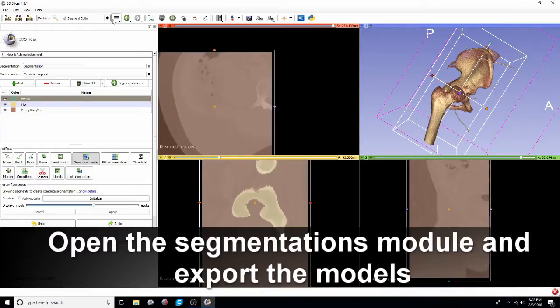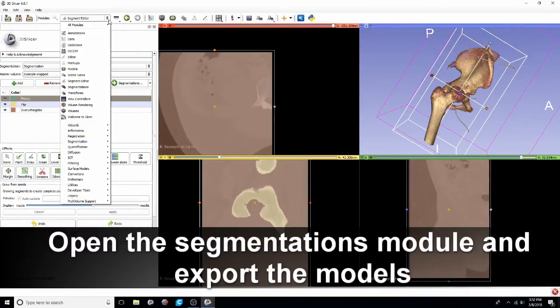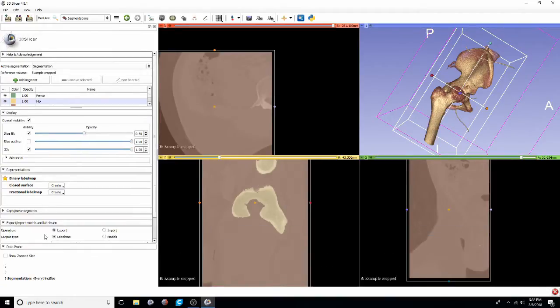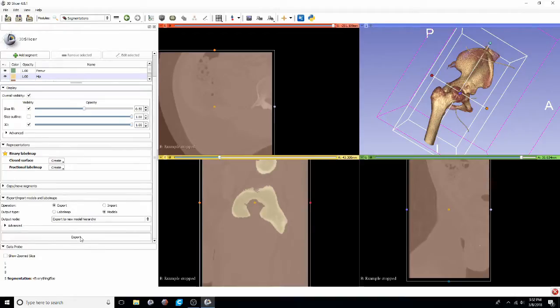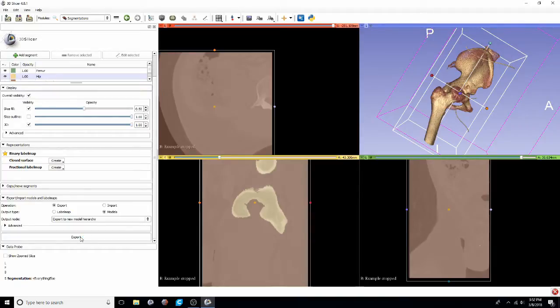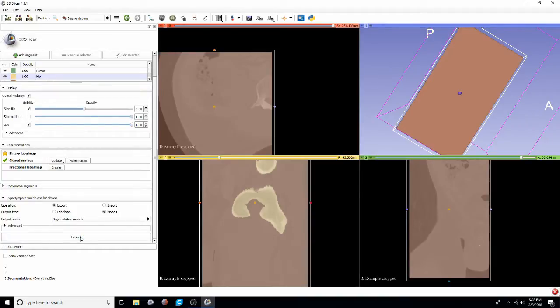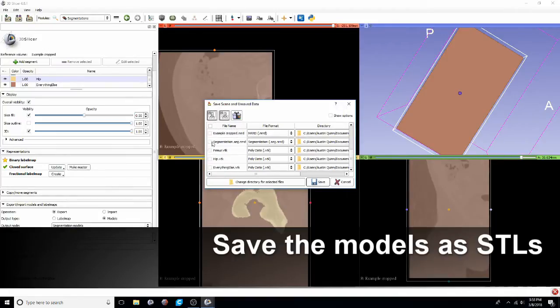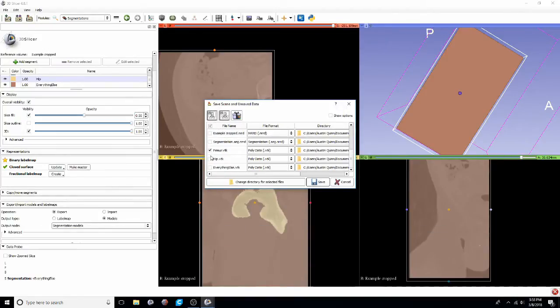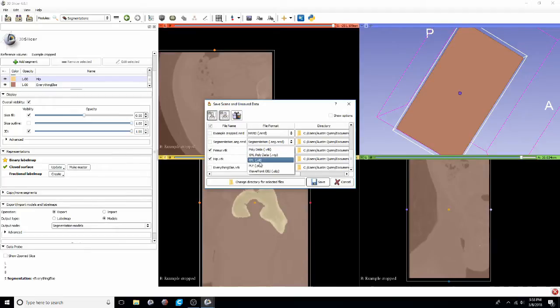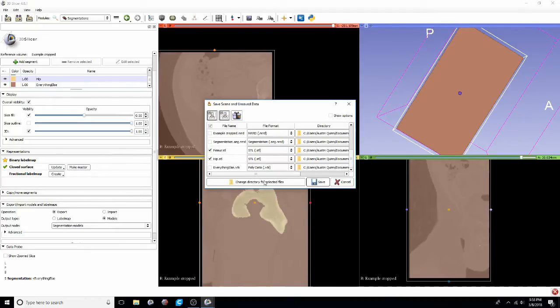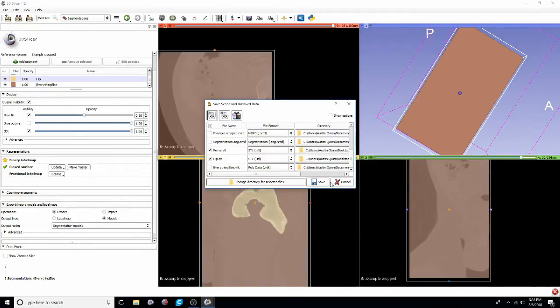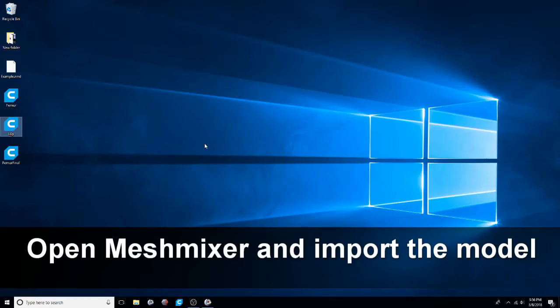Next we'll open up the segmentation module and then we'll export the models by going down. Export should be clicked and then switch from label map to models and click export. That's creating the final models. You can see now that in that 3D window that brown everything else label has popped up and you can't see a whole lot else. But that's okay for now. We'll go to save. Save our femur and hip models. Make sure to change from VTK to STL files. Choose your directory. I find it's really nice to keep the same patient anatomy all in the same folder.